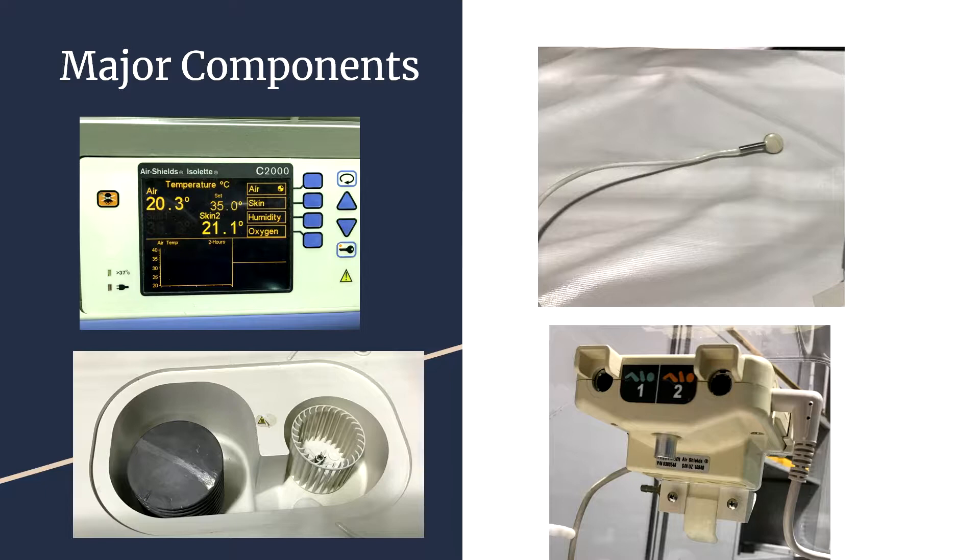On the bottom right is the general sensor. Most of the sensors, including the skin temperature sensor, connect there. It also senses air temperature and humidity.